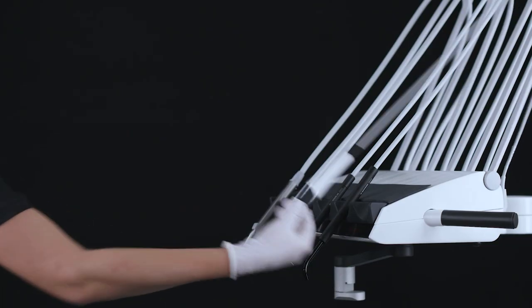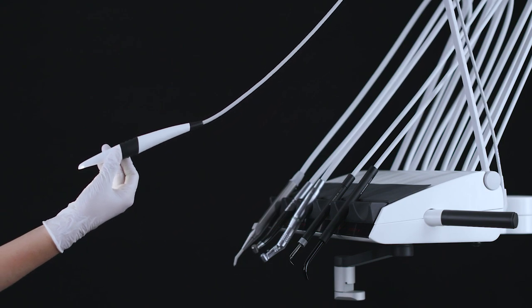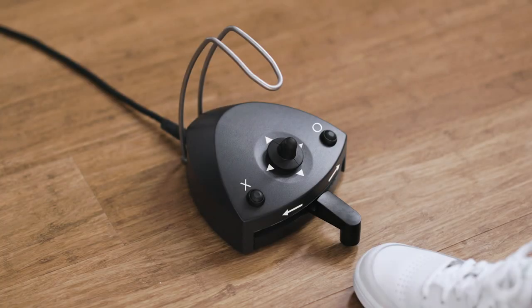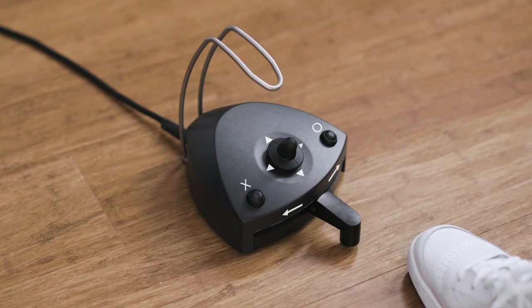Lift the camera forward and display a video image on a screen controlled with the foot control. Toggle between still and live mode by moving the pedal left. Save the active video to the connected PC by moving the pedal right.